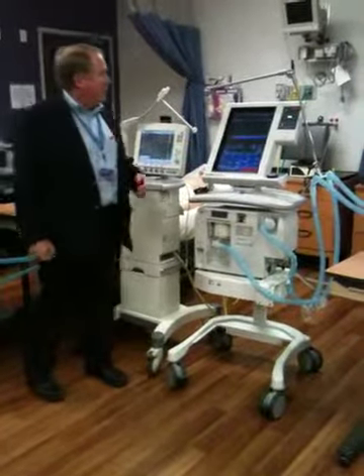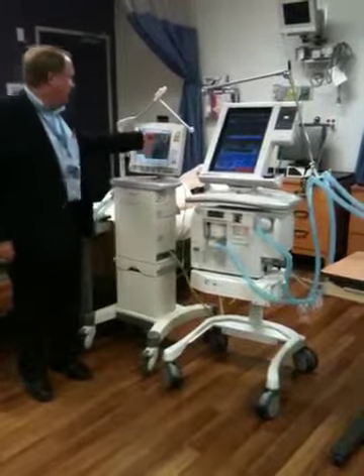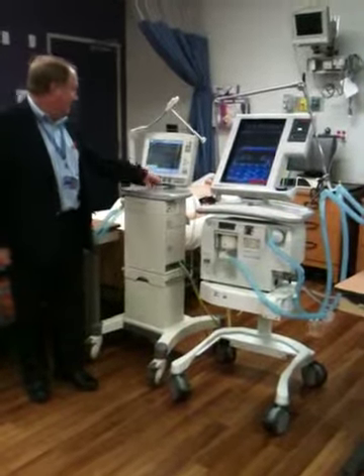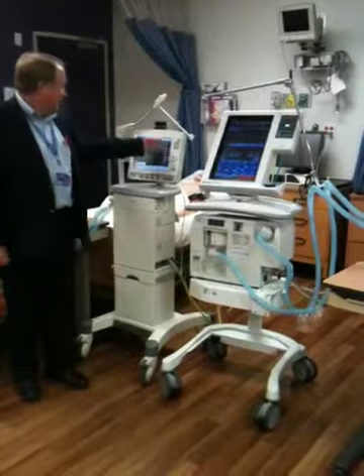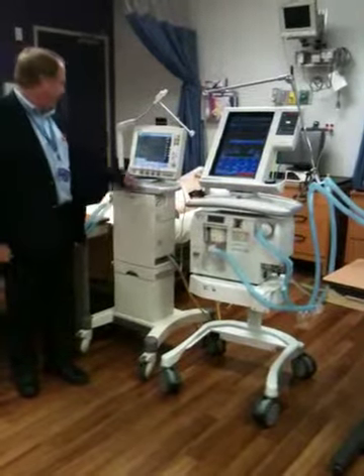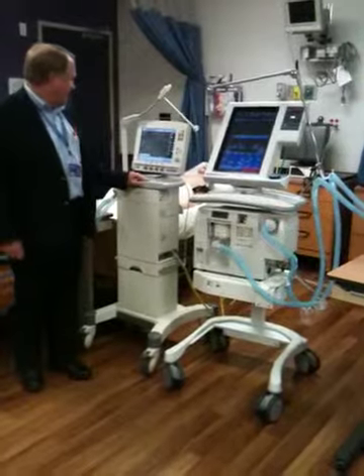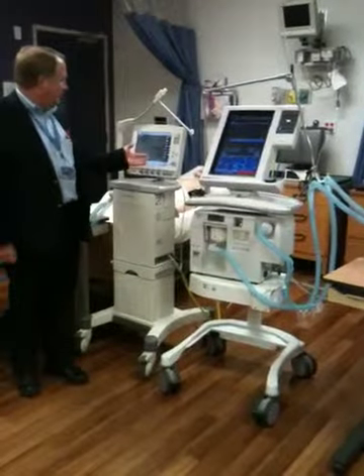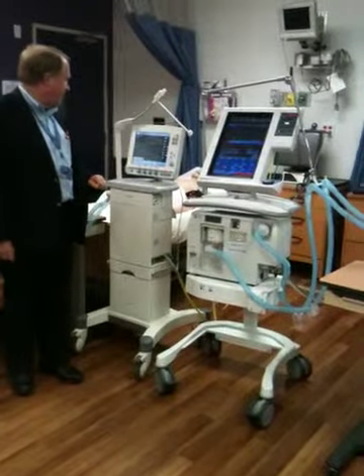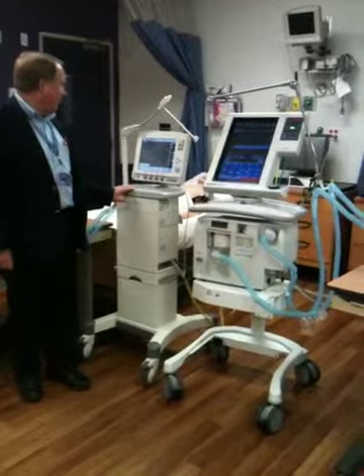But the graphics we use, the compliance, resistance, and you can see on these ventilators, for instance on this one, peak pressure, plateau pressure, mean pressure, peak. Compliance, resistance, sounds familiar. This one is 8 centimeters of water pressure per liter per second. It gives us both resistance inspiratory and expiratory. We have greater expiratory resistance than inspiratory. And we've got our compliance at 48 milliliters per centimeter water pressure.